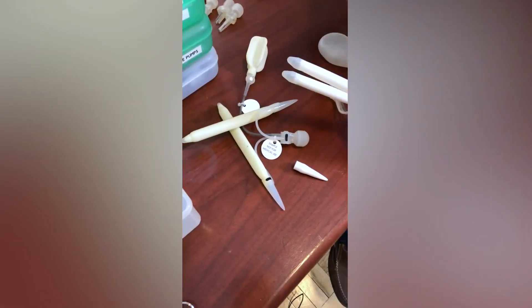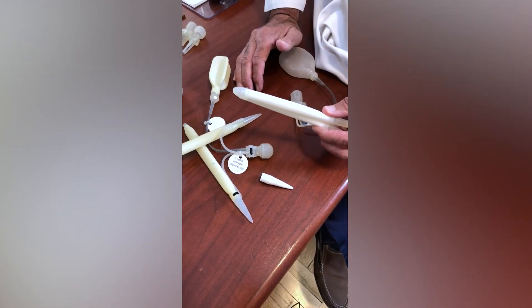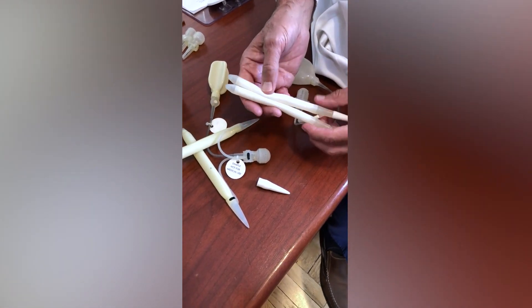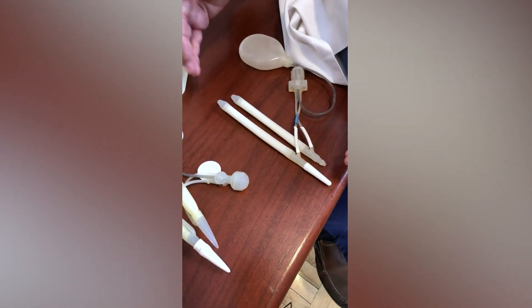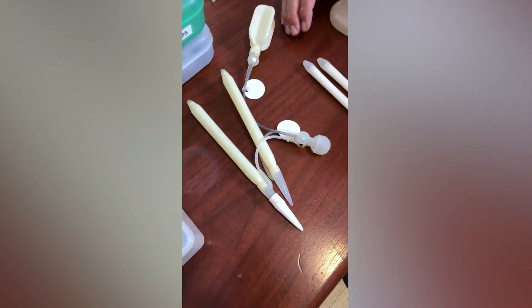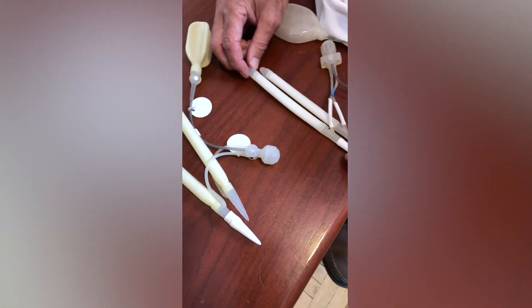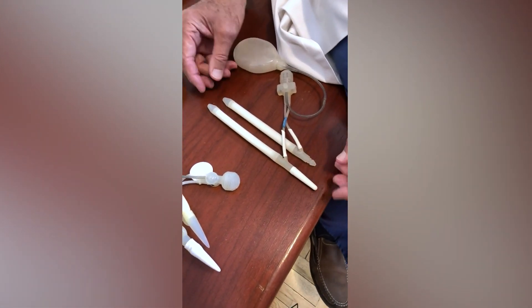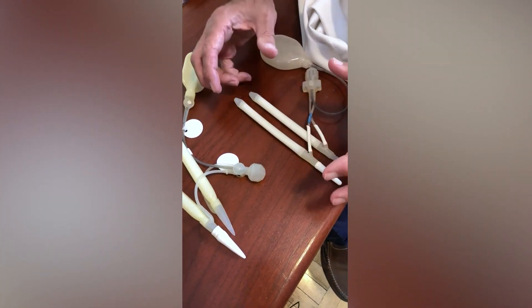It's important to tailor the implant to the patient's anatomy, the patient's age, the size of the scrotum, and the strength of finger manipulation of the device. On the market we have three types of cylinders: the Coloplast cylinders which have more girth, the AMS CX cylinders which expand in girth only and not in length, and the cylinders called the LGX which expand in both girth and length.